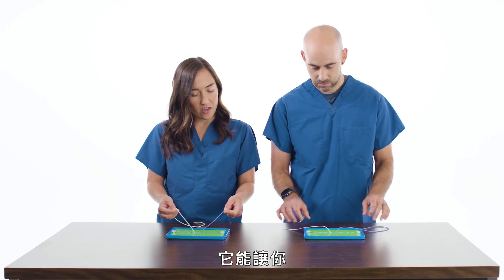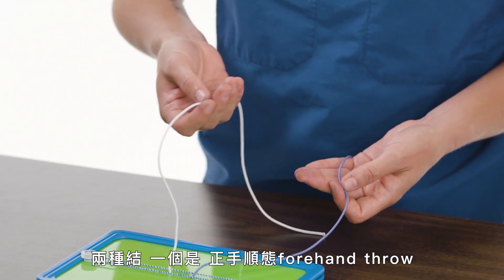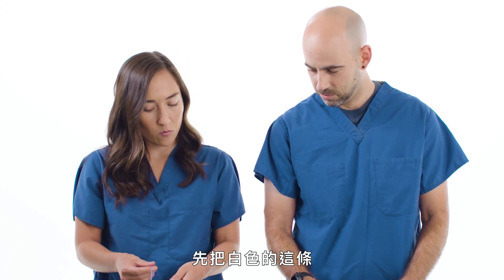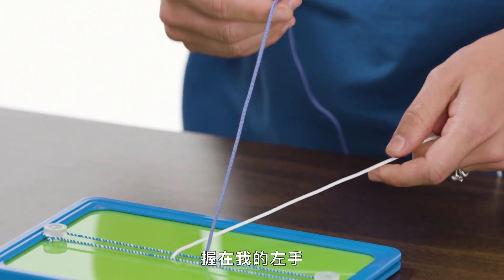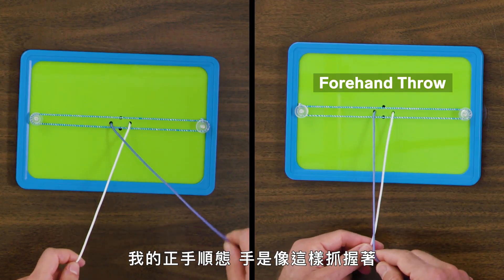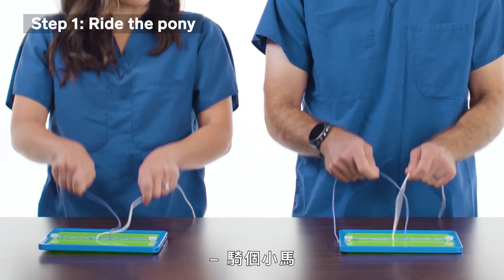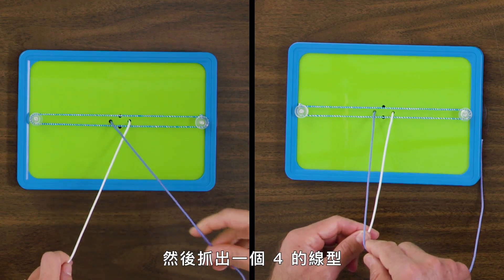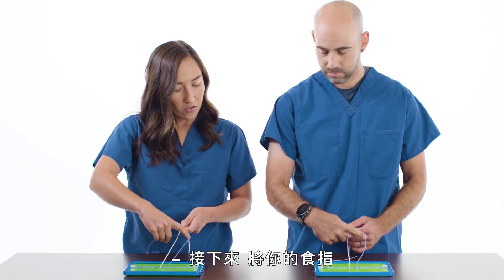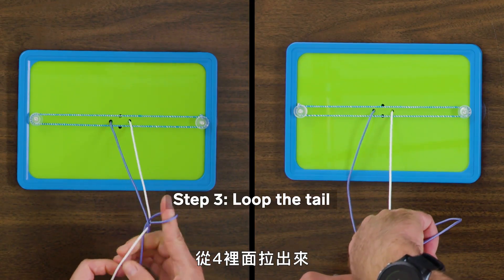The reason the color is helpful — it will show you that your knot is lying perfectly as you tie it. In a one-handed tie there are actually two knots: a forehand throw and a backhand throw. I'm going to take the white string and hold it in my left hand, so that my purple is crossed. My forehand throw has an overhand grip like this — like you're riding the pony. With your strings crossed, you're going to create a four shape. Do you see the four? I do.